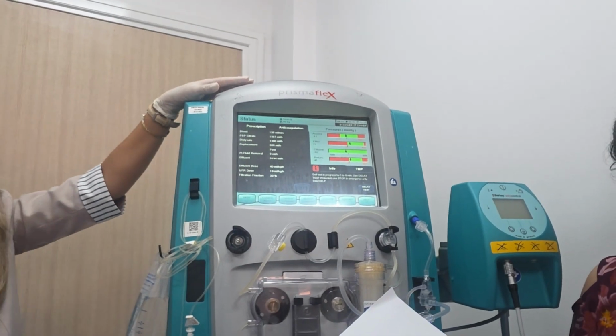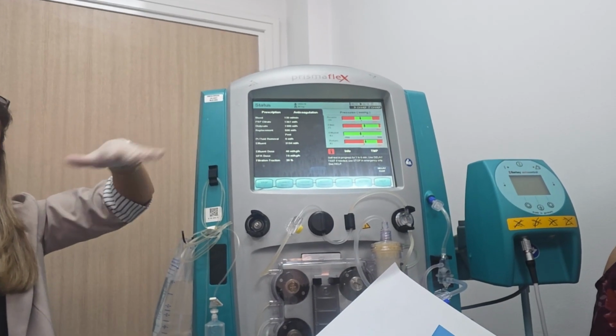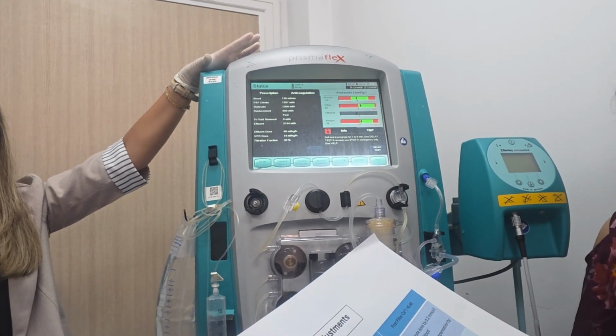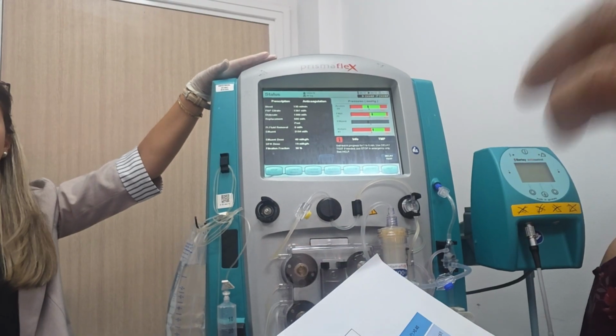After 4 hours, since you did it at the second hour, you can repeat it after 4 hours if the patient is still okay. So after 4 hours you take another 2 ABGs. Once we did some changes, we wait for 4 hours. We did some changes now.